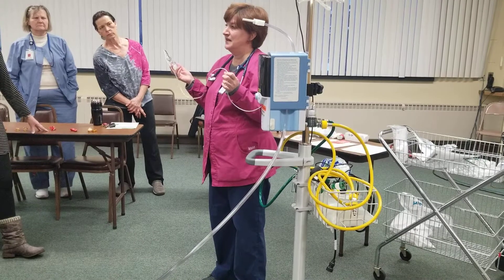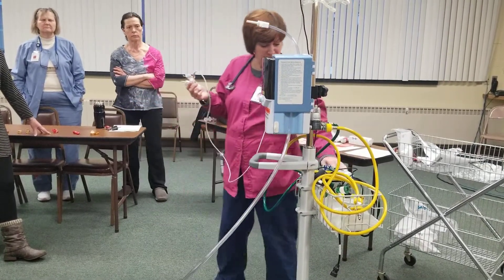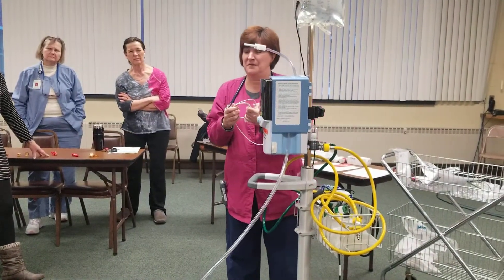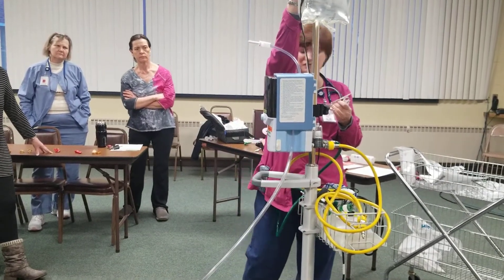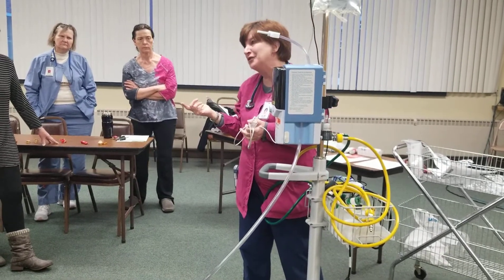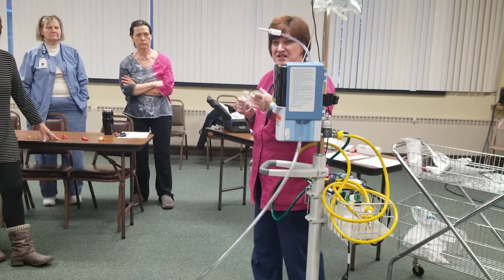Any questions with using this? It is fairly simple to set up. You guys feel comfortable? As long as the directions are in. I need to get that signage hung up for you. We can hang it over when they go in the bath and put the nasal cannula on. If they don't tolerate the cannula, then take the Vapotherm with. Any more questions on the neb and how to do the neb?